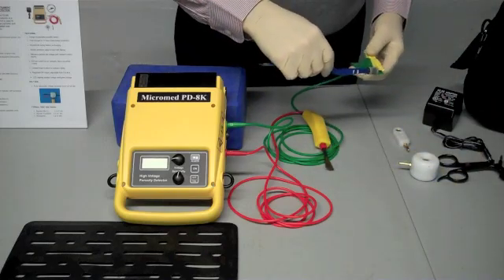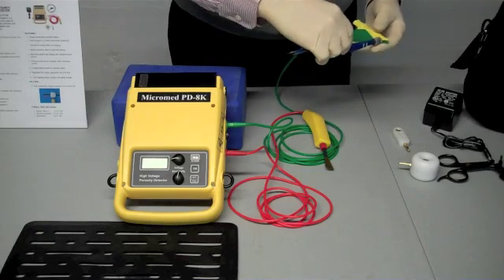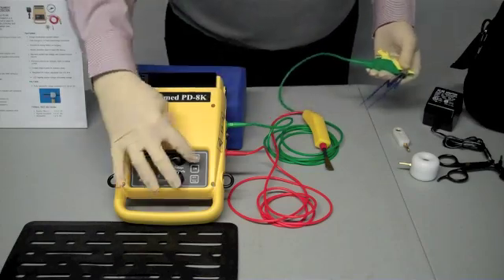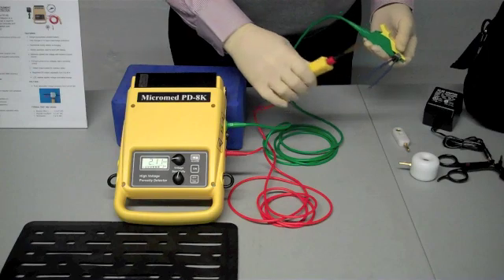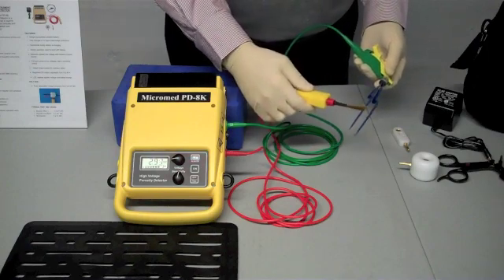Now let's test the bipolar unit. Attach the ground. Hold it in your hand firmly. Turn the unit on. Take the brush electrode that's already on and go up and down. You'll see the fault at the end.